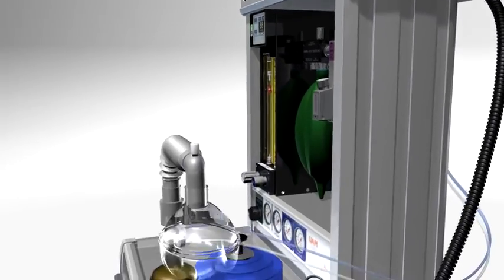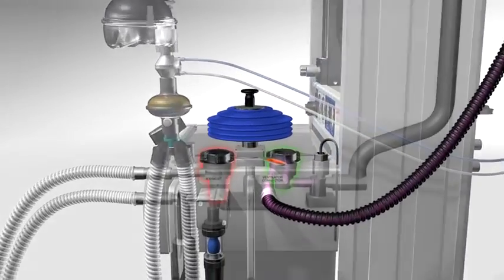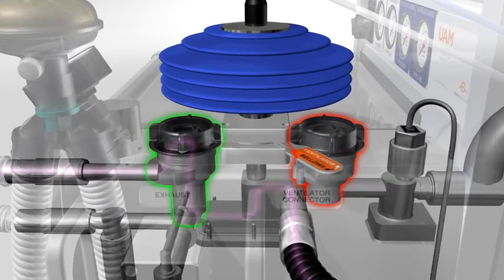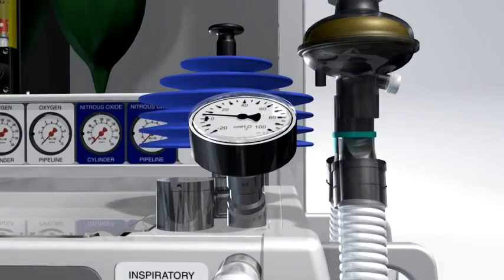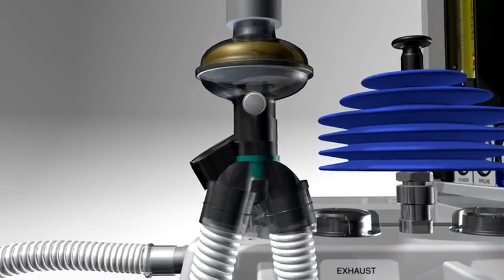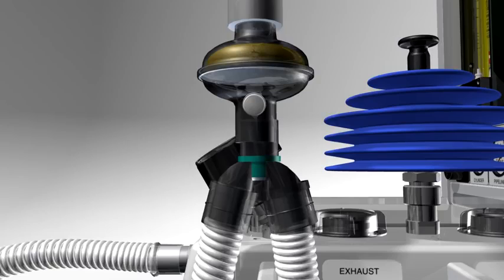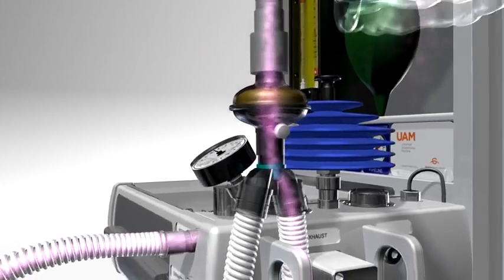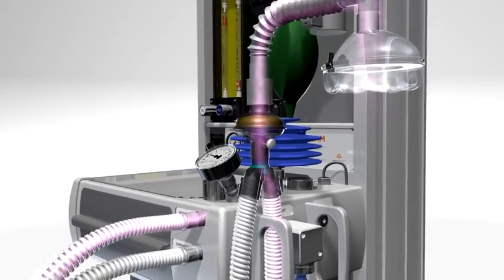Anesthetic gas is delivered to the breathing block and through the one-way valves and inspiratory limb in the same way as the manual bellows shown earlier. The UAM uses a conventional Y-piece patient connection. The anesthetic gas flows to the patient through the Y-piece connected to a face mask, endotracheal tube or LMA.